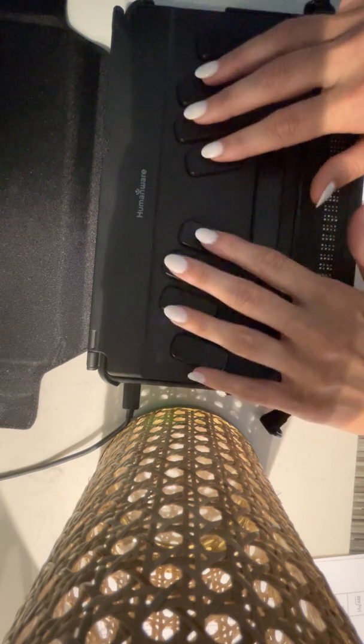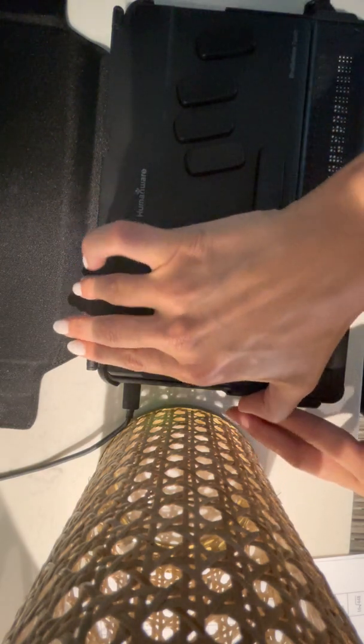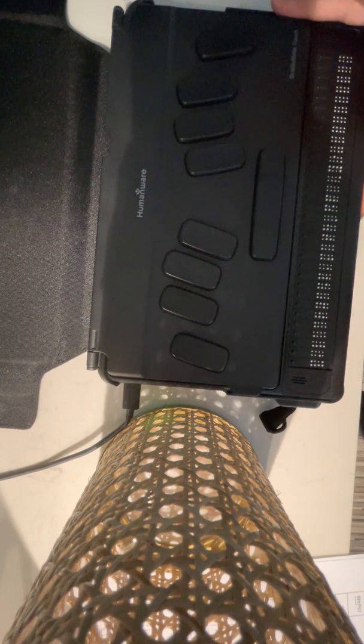Move to clipboard. Edit box. End of document. Move to clipboard. A Braille entry is required. Okay. It opened me back up to my keyword. Now I want to paste it in here. So if I want to paste it in here, I am able to do backspace with V as in paste, or I can press the context menu button.